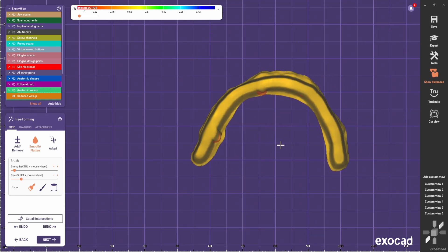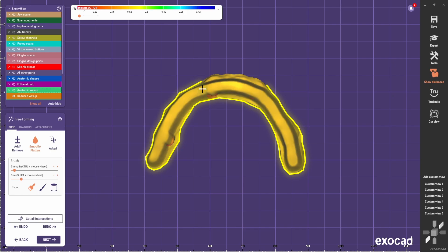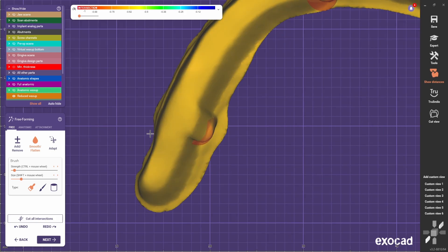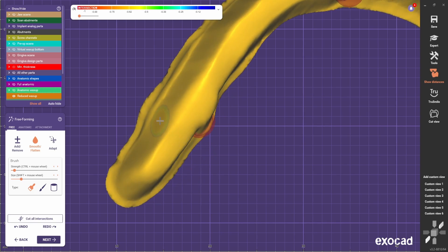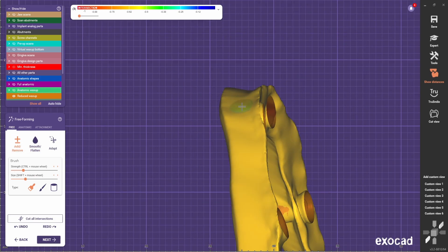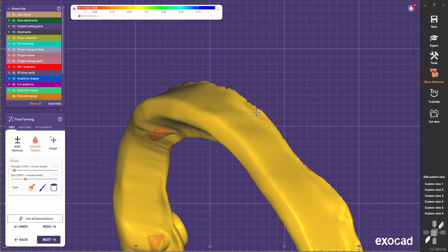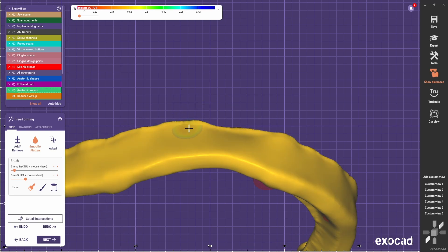It's very important to always view from this point of view and make sure you can see the margin all around. If you can see it all around, it means that you have no undercuts on the margins. For example here, I don't clearly see the margin, so I'm going to bring the top part a bit more in by smoothing this part to make sure I have a clear path of insertion and no open gaps on the margins. I'm just smoothing the margin a bit because it's looking a bit rough.